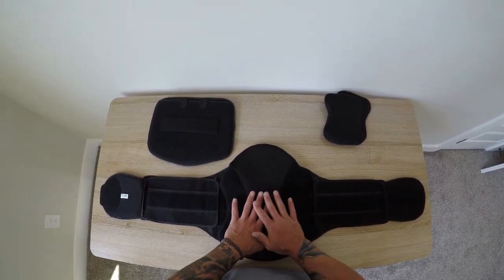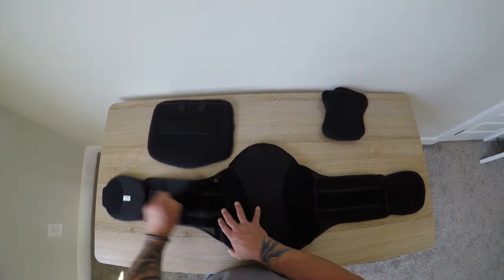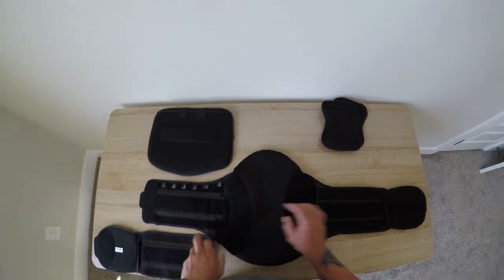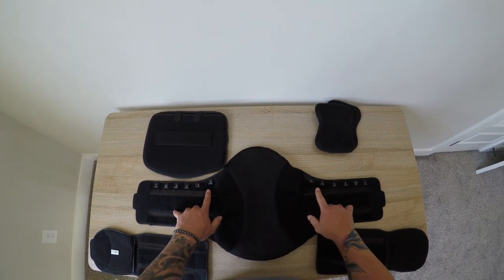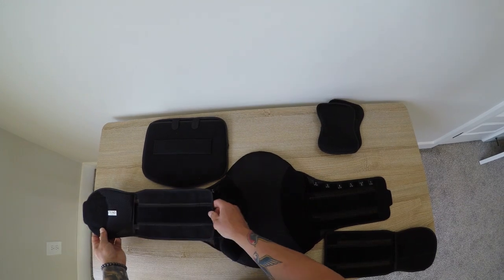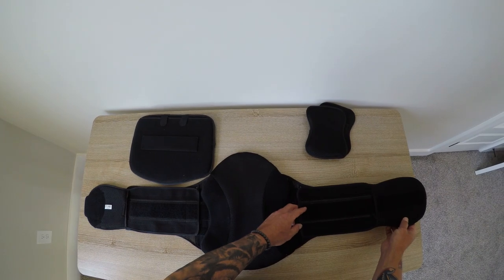All the patient needs to do is lie the brace flat on the table and open. Lifting up on the left and the right wing, the patient can see the inch marks for their circumference. Taking a wing, they slide out or in to their desired measurement and press down, matching on the opposite side.